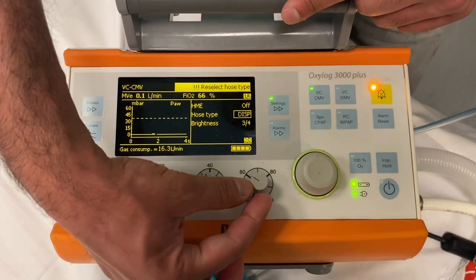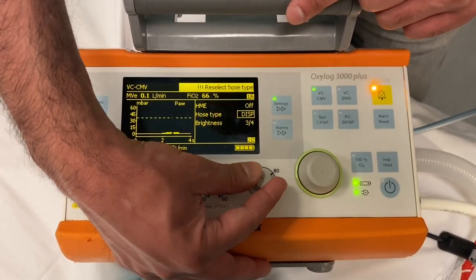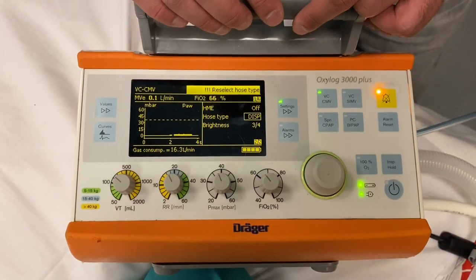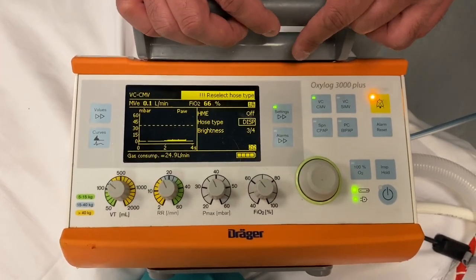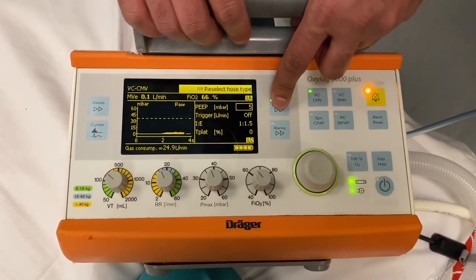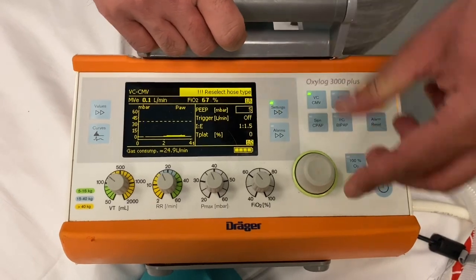To change the amount of oxygen that is delivered to the patient, you adjust this knob here. To change your inspiratory-expiratory ratio — your IE ratio — you click through settings until you see IE, as is denoted here.